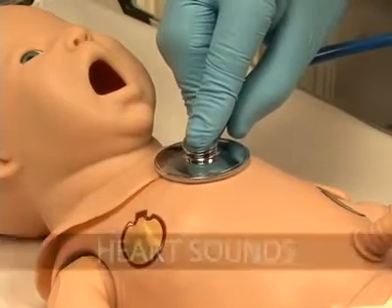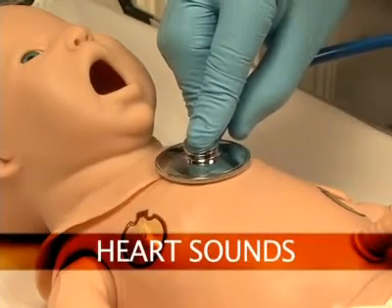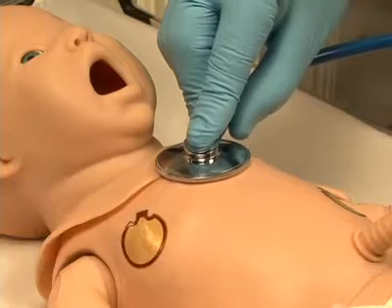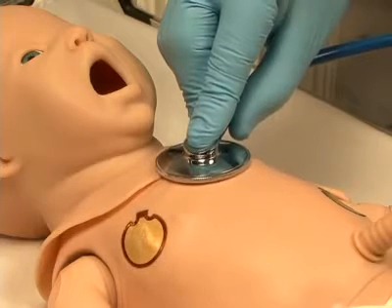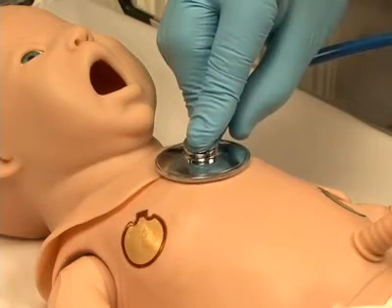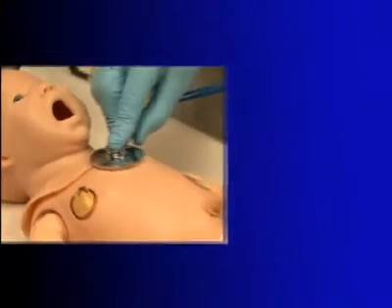Newborn HAL is equipped with several realistic heart sounds, which are tied to a user-defined heart rate and selectable rhythms.